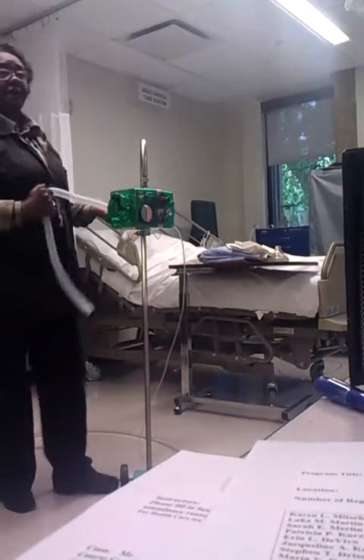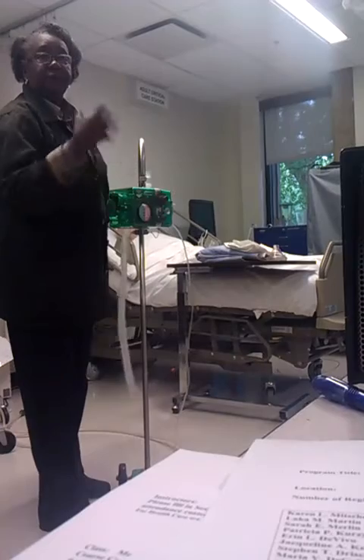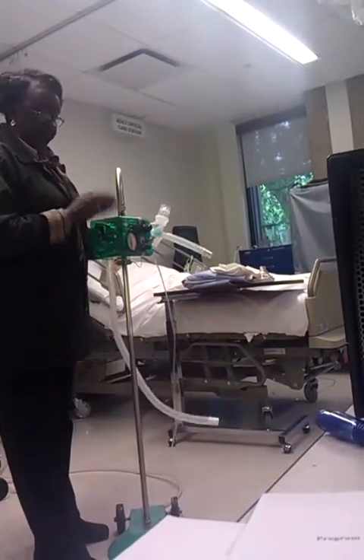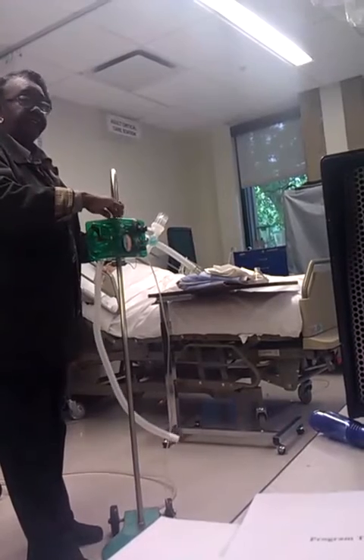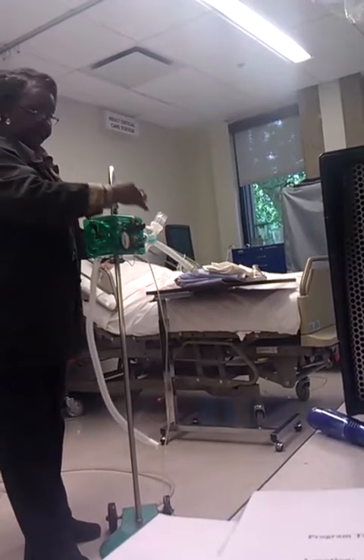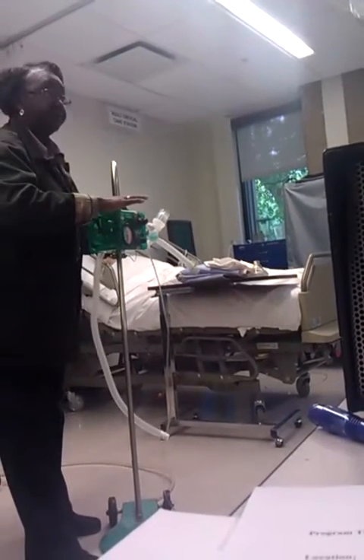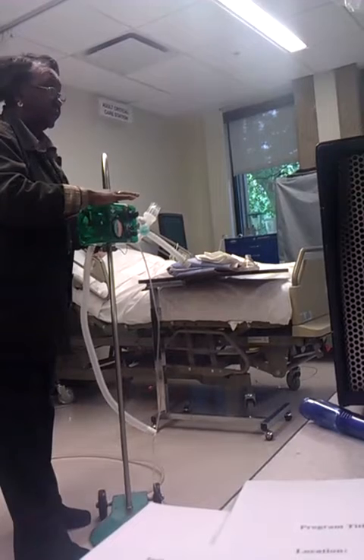As I also said, you have an air mix, which you can do 100% gas source, which is, if you're on oxygen, it's going to give them 100% oxygen, but if you're in the air mix mode, it's going to suck in some room air. On the ambient side of the machine here, you'll look really close. There's a thing here that looks a whole heck of a lot like a Venturi. It actually is. Your gas source comes down to the center body. It will come up through your ambient chamber where room air is, and as it's going through here, it actually acts on the same principle as a Venturi and mixes room air with the oxygen.